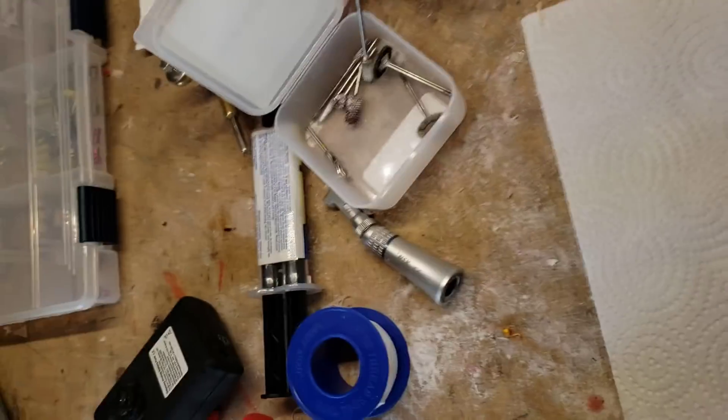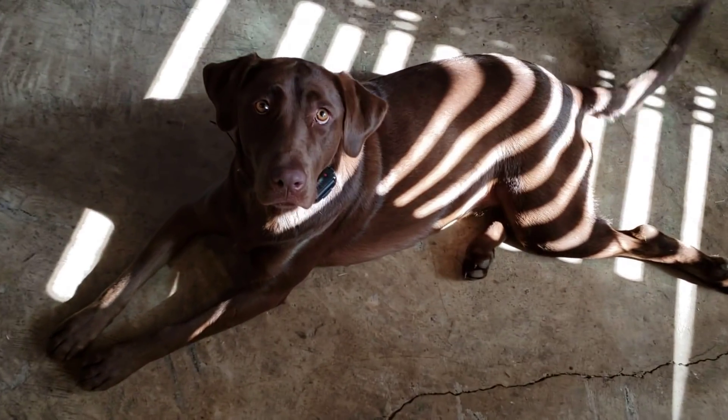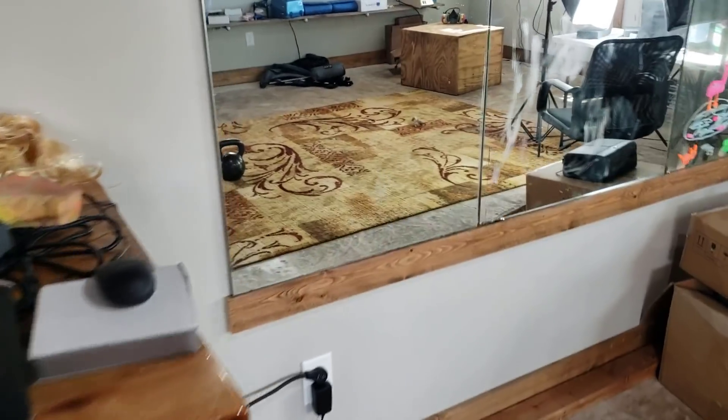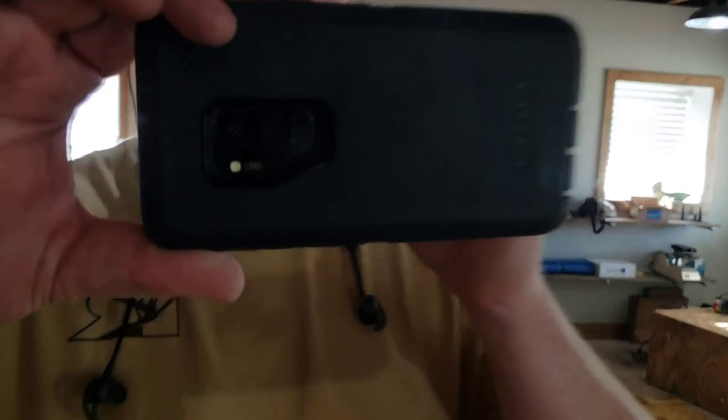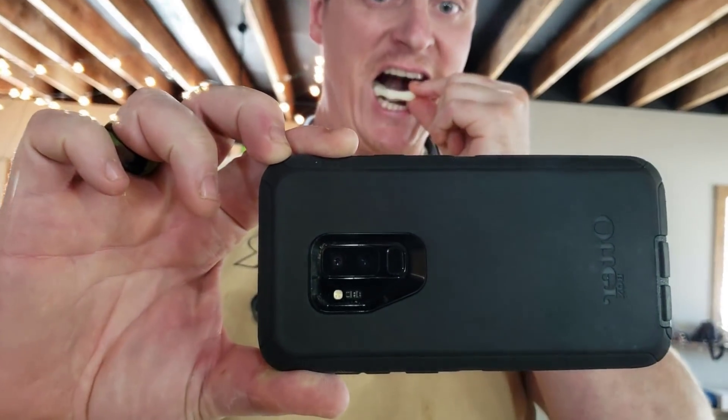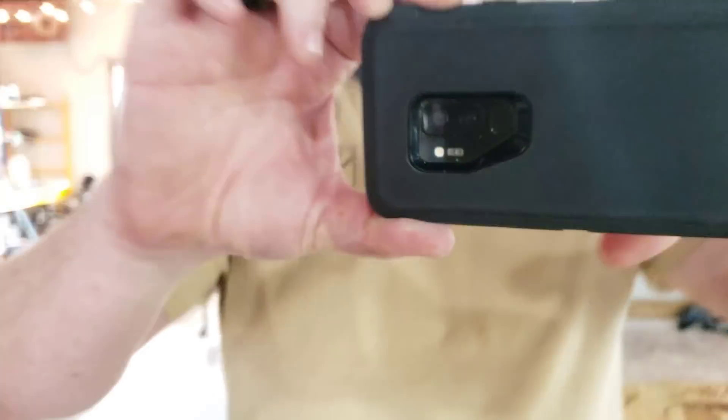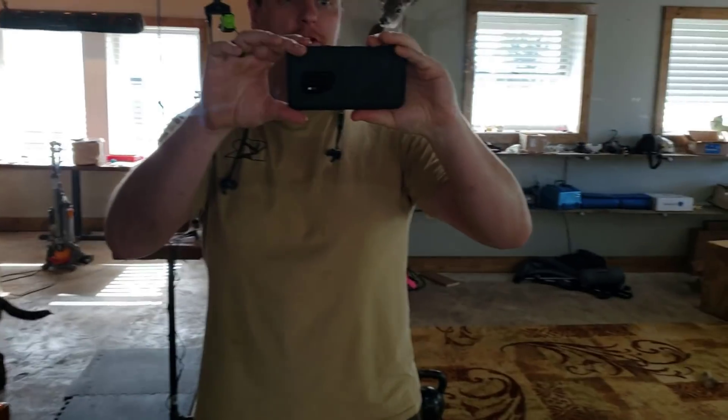What do you think? Do you think it's going to fit? I think it's going to fit. Let's go see. Dead solid bite right out of the printer and great fit. I think this is a great use of the digital denture software for making night guards.